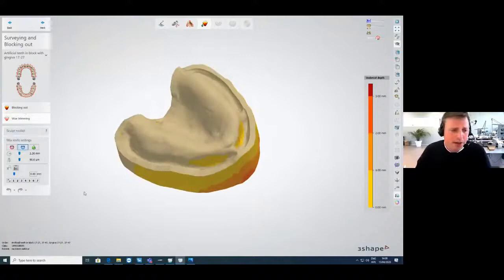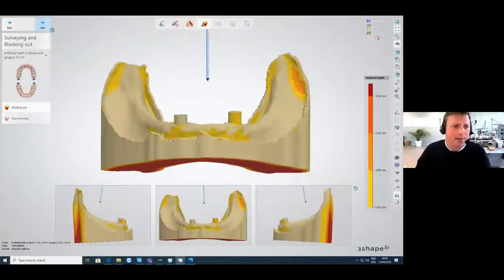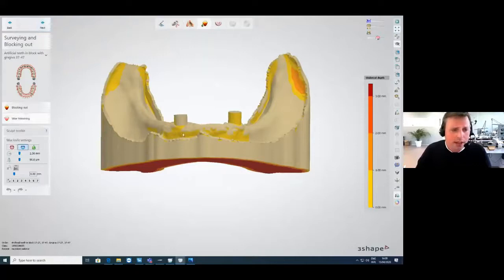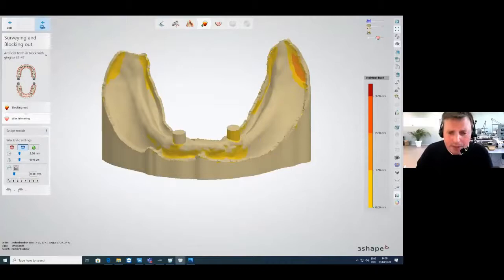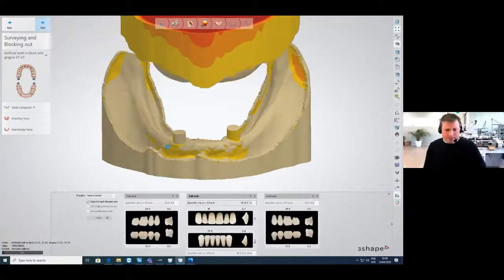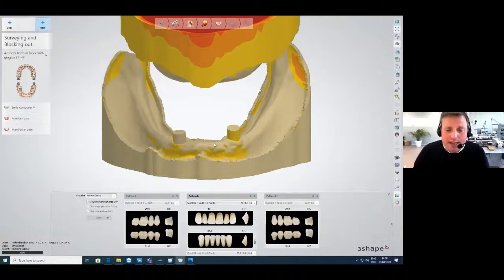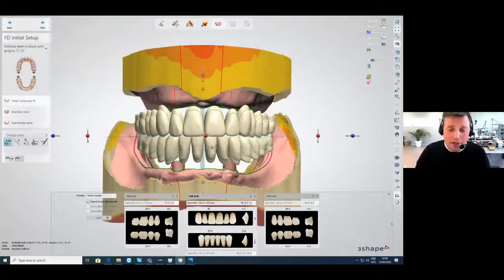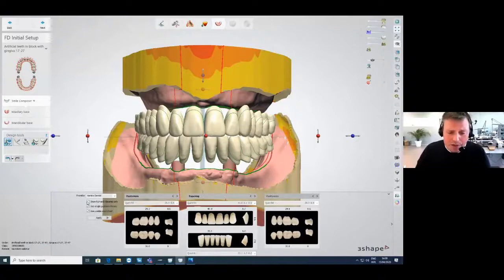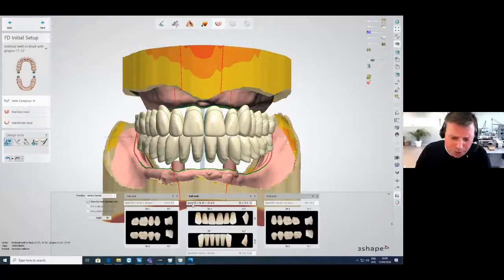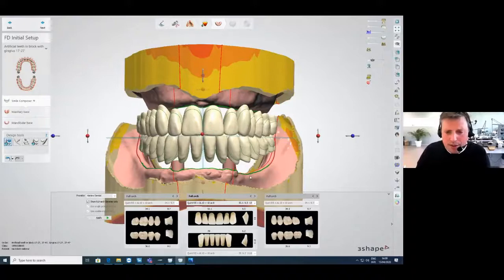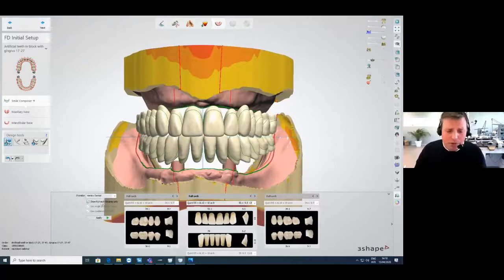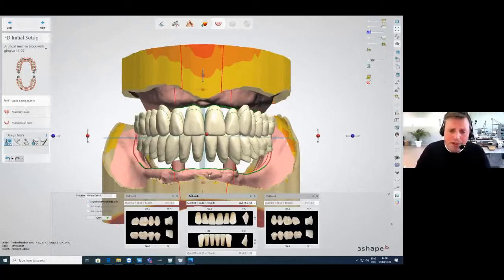You can block out parts of your model using the add button to add material. Then we enter the setup phase. We use the Vertex Dental library, which is free to download in 3Shape from the control panel library section. There's a full arch library and a normal library. When you choose the full arch, anteriors and posteriors are related to each other, giving you a perfect setup already in your smile composer. Choosing normal libraries gives more freedom but requires combining lower and upper manually.